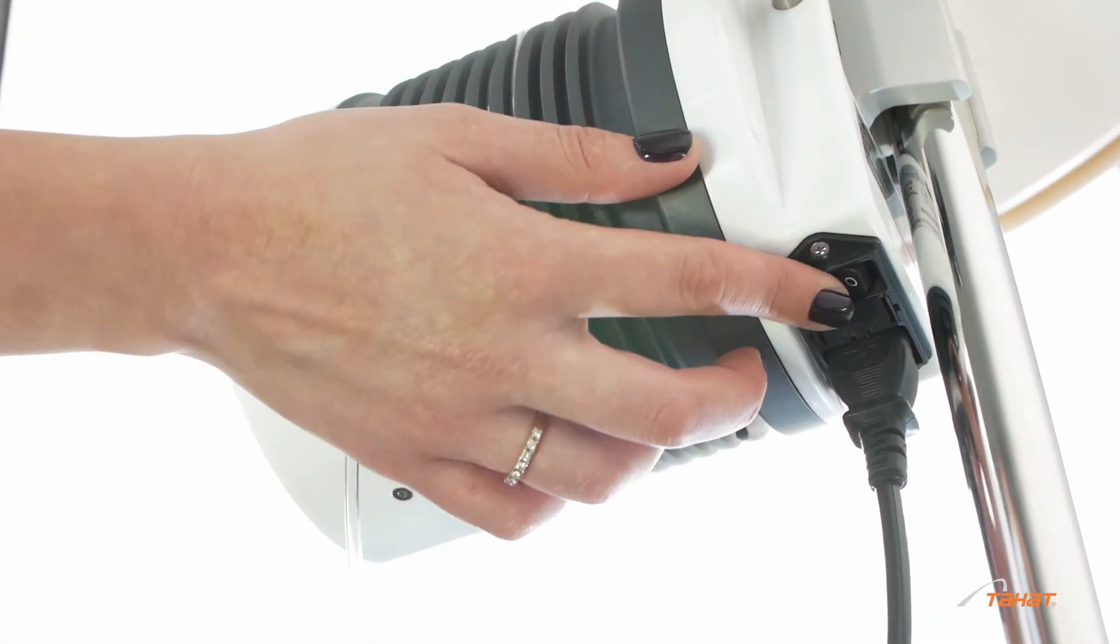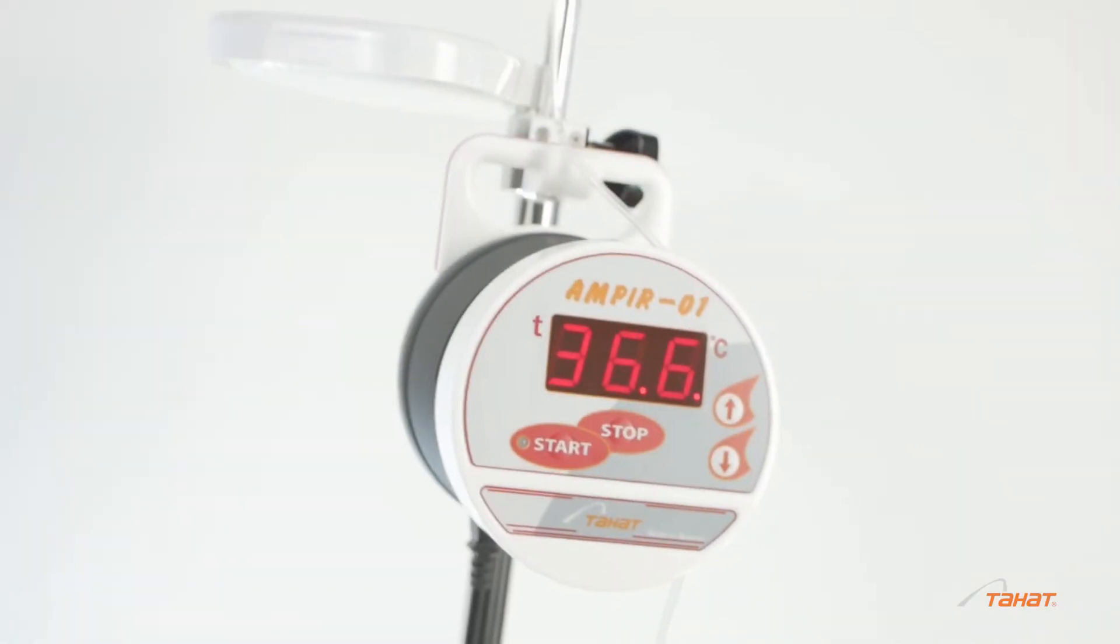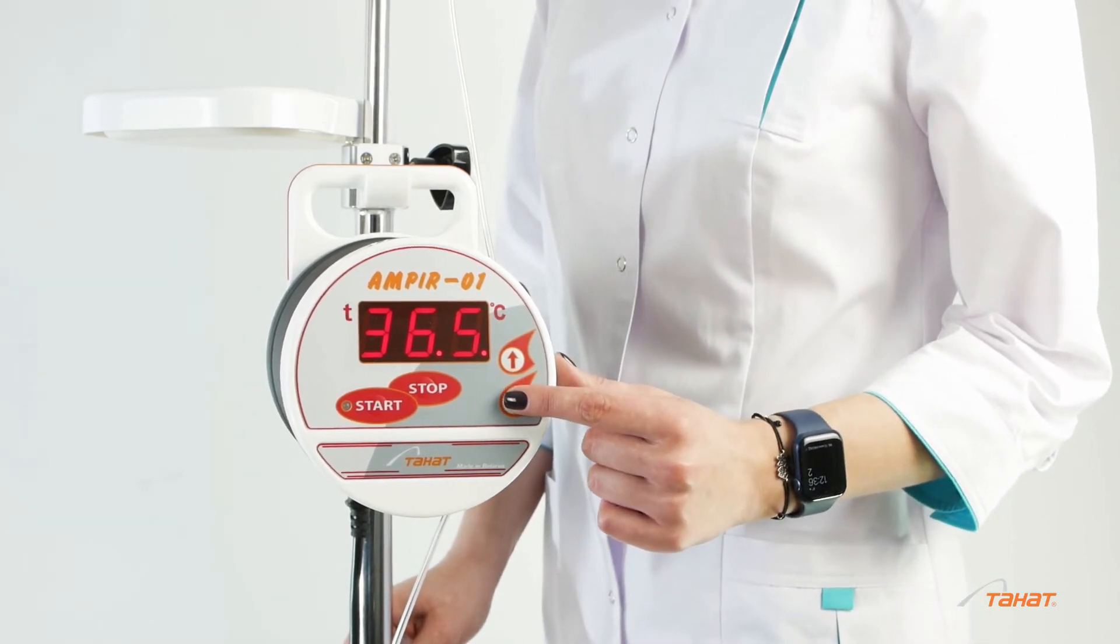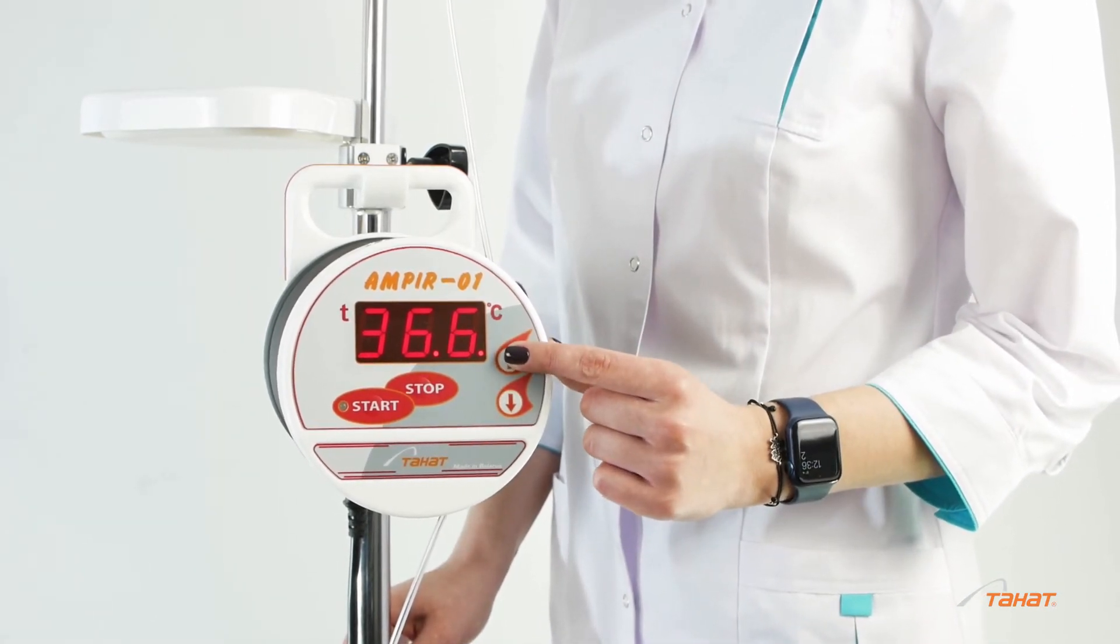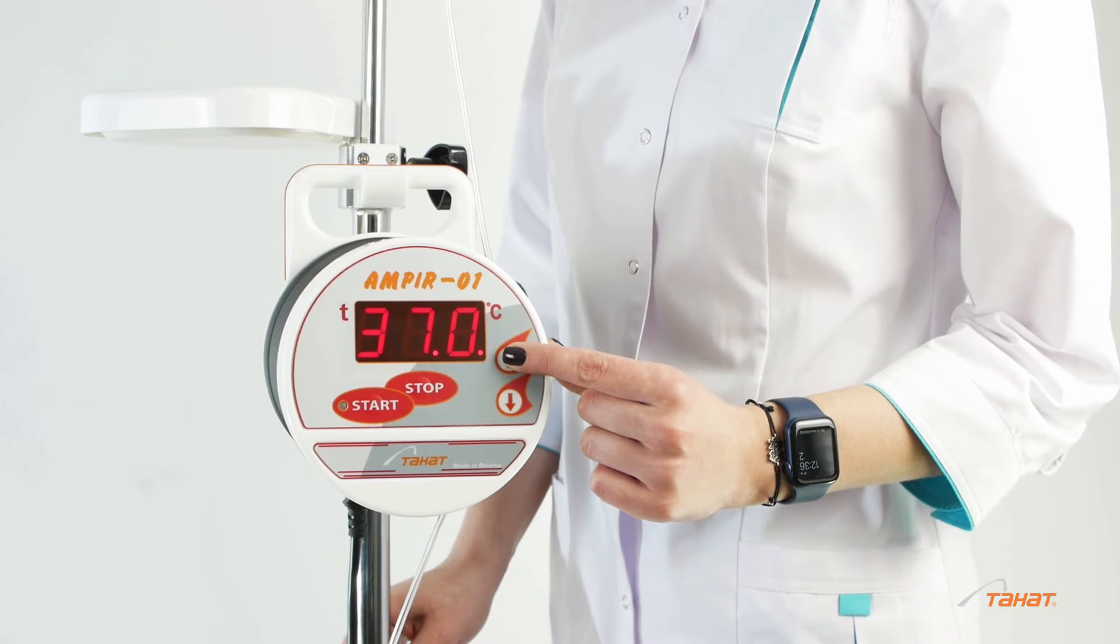Switch on the device. Previously set temperature will appear on the display. Using the button set the required temperature and press start.